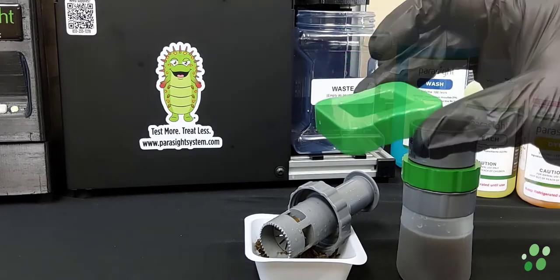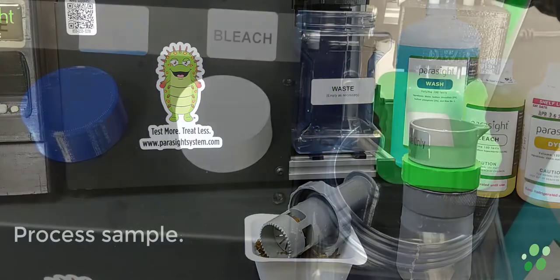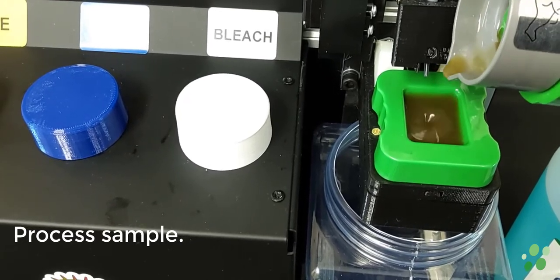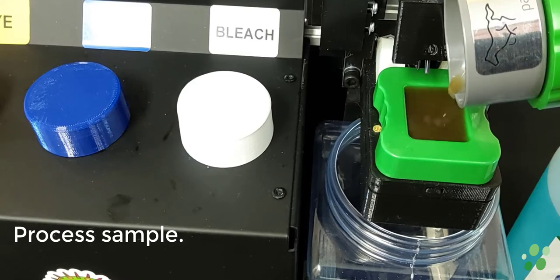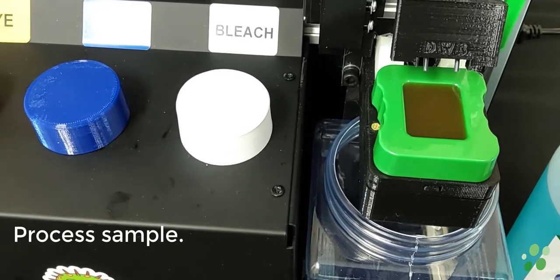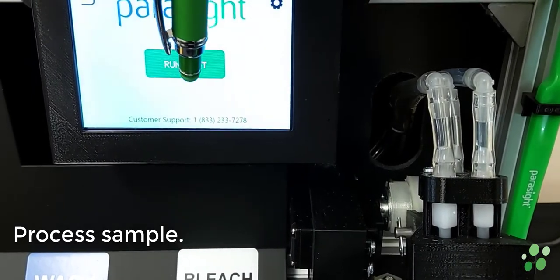The sample will be processed on an egg chamber. The color-coded frame allows users to easily determine if they have the correct filter for their sample. After placing the filter on the reagent dispensing unit, pour the sample onto the filter. On the reagent dispensing unit, select the horse and then select Run Test.